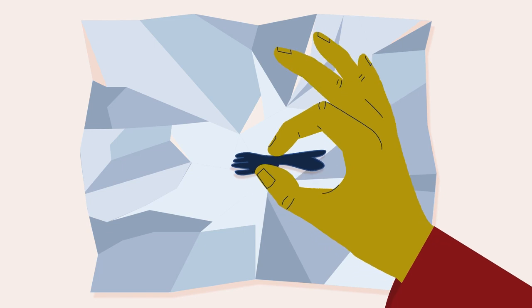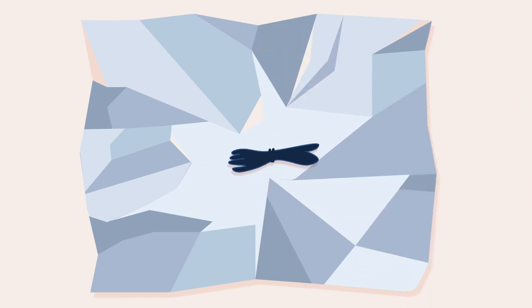Stick a red arrow to the foil pointing at the top end of your hair sample to show which end comes from closest to your head.